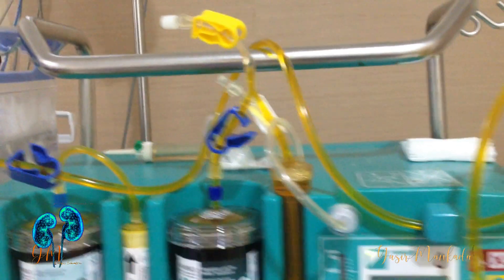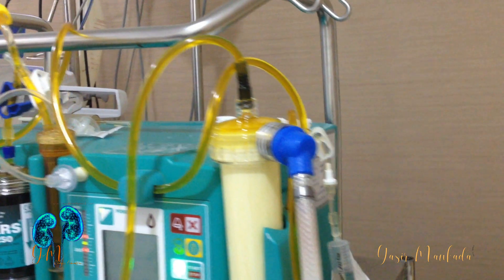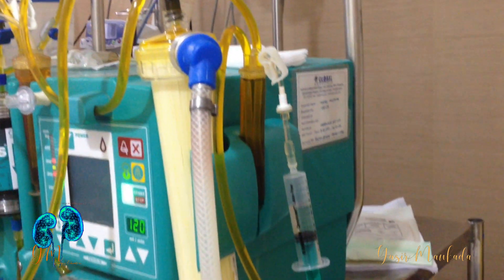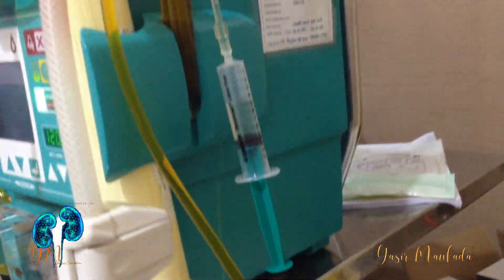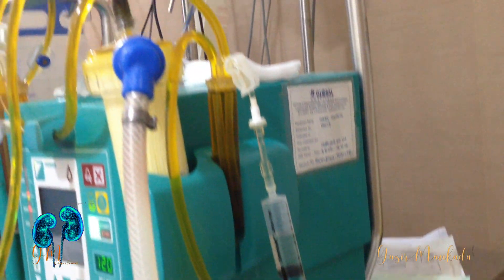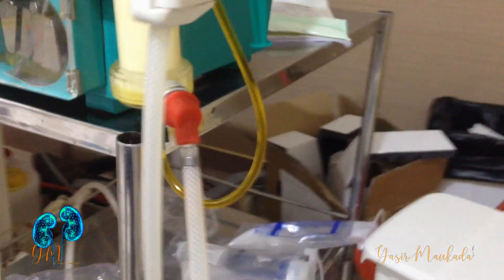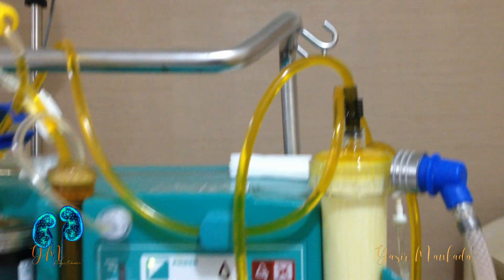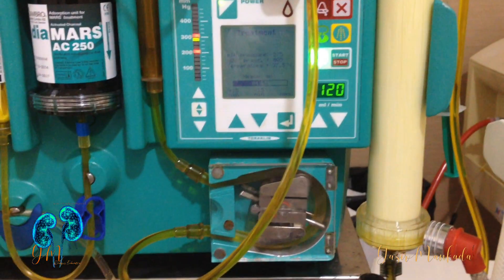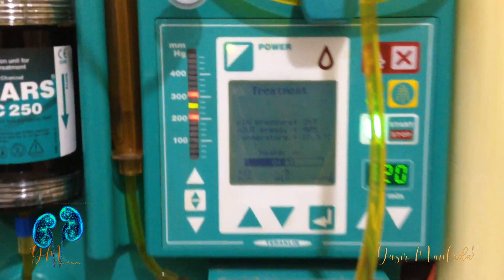The MARS system consists of three compartments: a blood circuit, an albumin circuit, and either an HD or HF compartment. The blood circuit generally employs a veno-venous access with a blood pump at a speed of around 150 milliliters per minute. Blood is passed through a special non-albumin-permeable high-flux dialyser membrane, usually made of polysulfone.